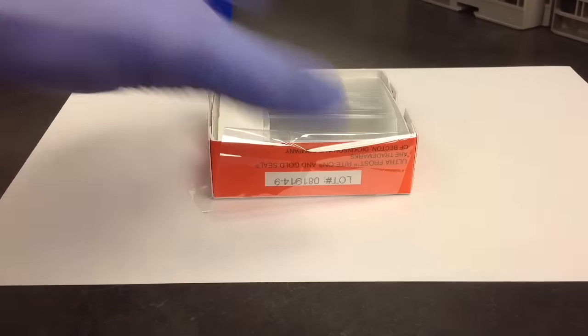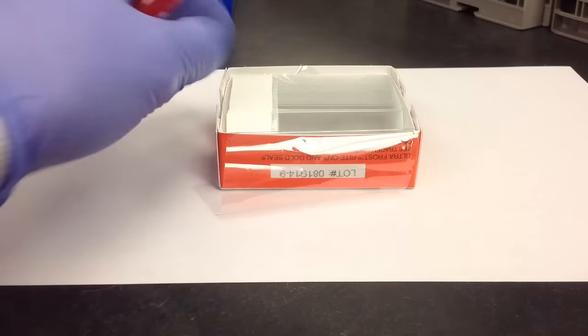In this video I'm going to show you how to make a peripheral blood smear. For this you're going to need some slides.